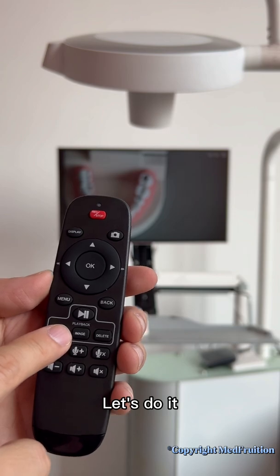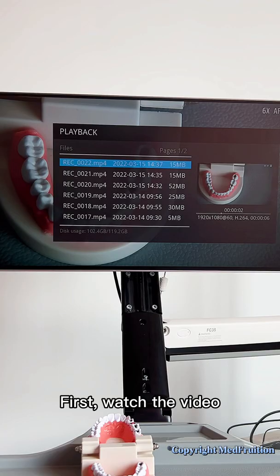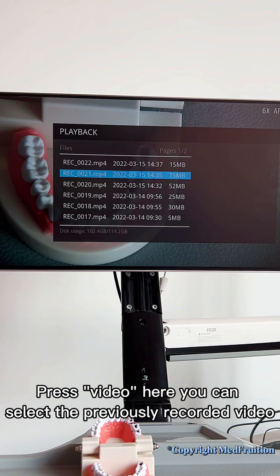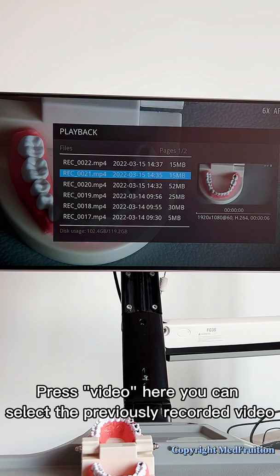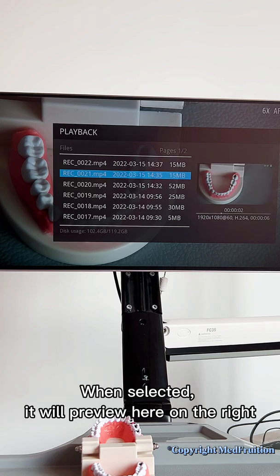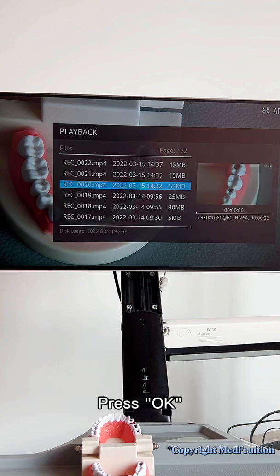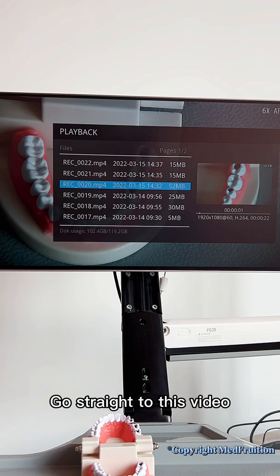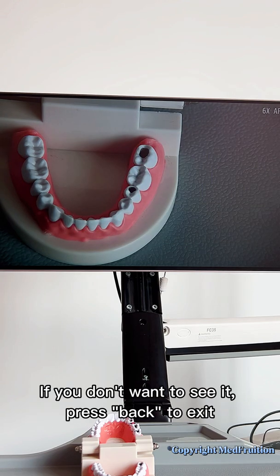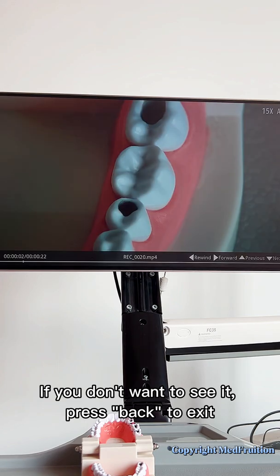Let's do it. First, watch the video. Press video here — you can select the previously recorded video. When selected, it will preview here on the right. Press OK to go straight to the video. If you don't want to see it, press back to exit.